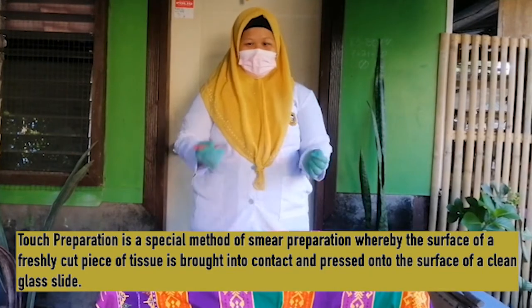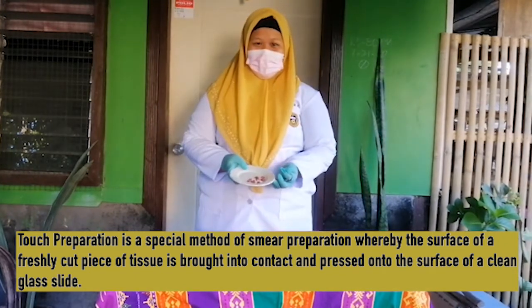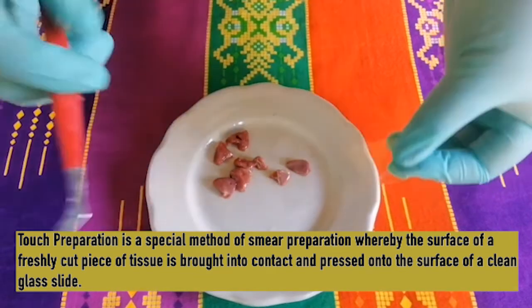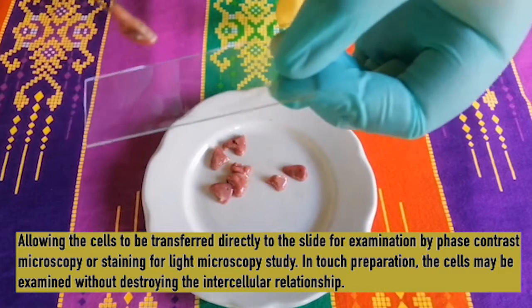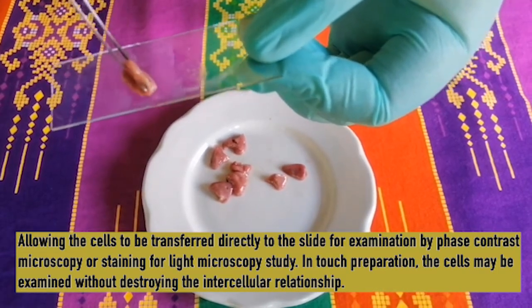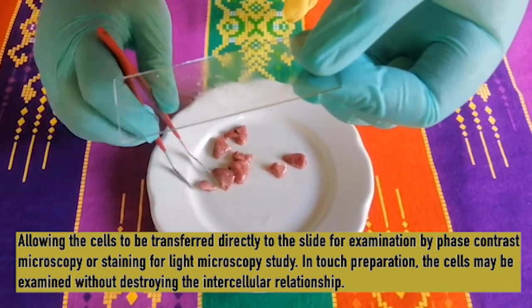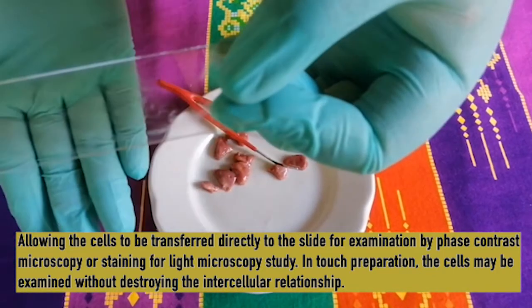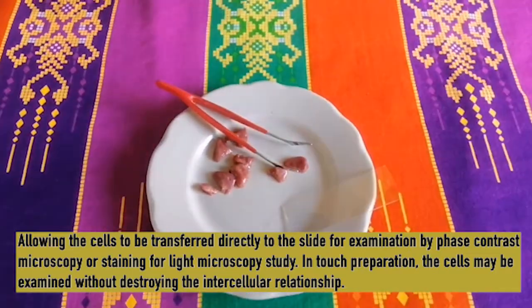Touch preparation is a special method of smear preparation whereby the surface of a freshly cut piece of tissue is brought into contact and pressed onto the surface of a clean glass slide, allowing the cells to be transferred directly to the slide for examination by phase contrast microscopy or staining for light microscopy study. In touch preparation, the cells may be examined without destroying their intercellular relationship.